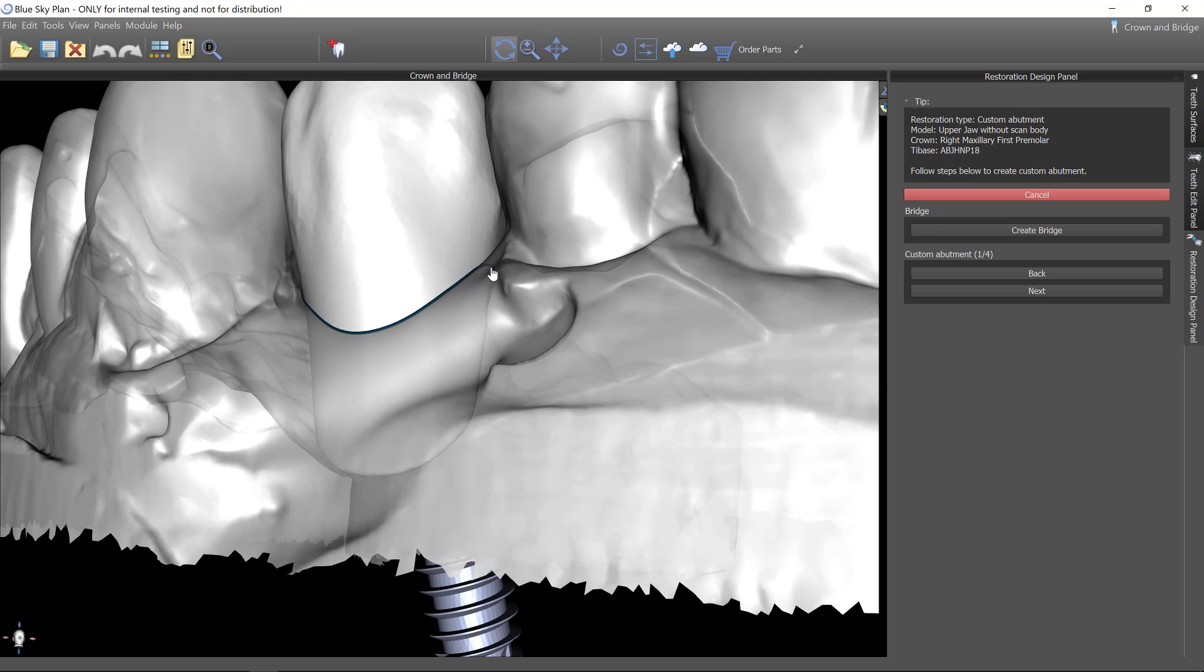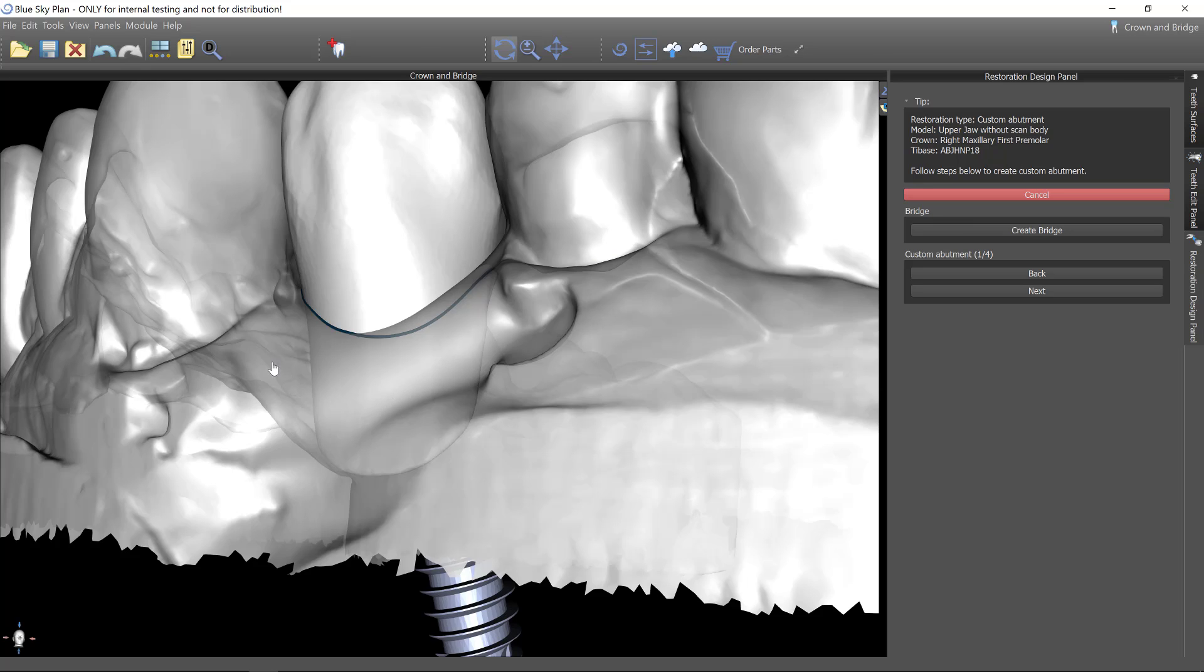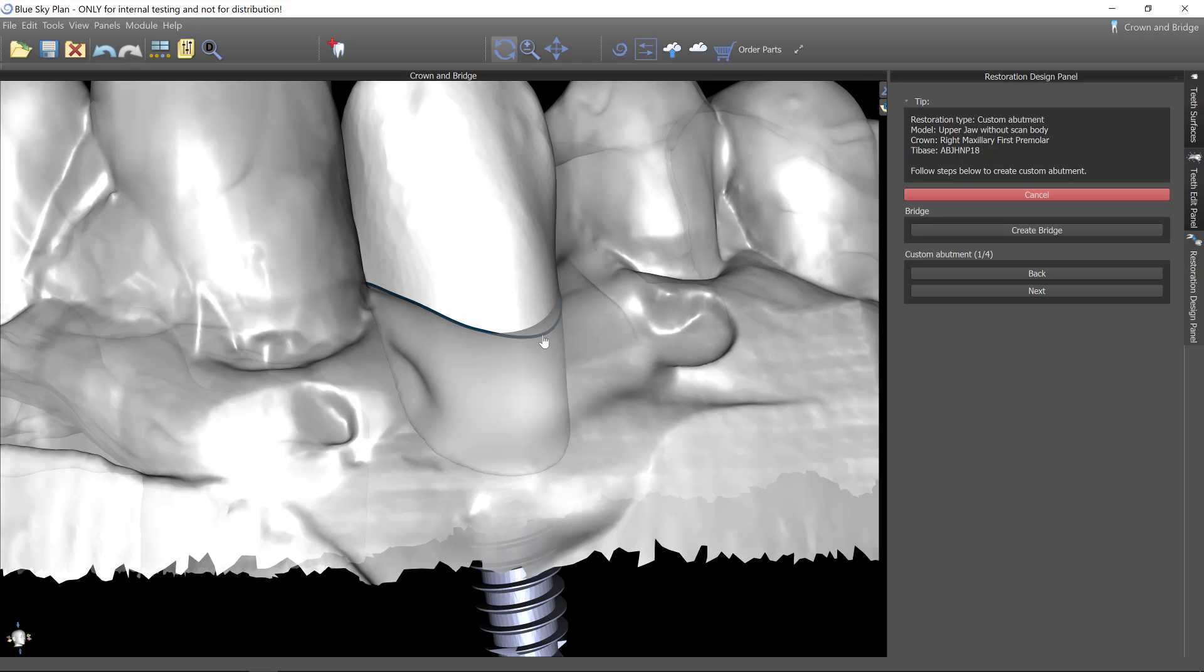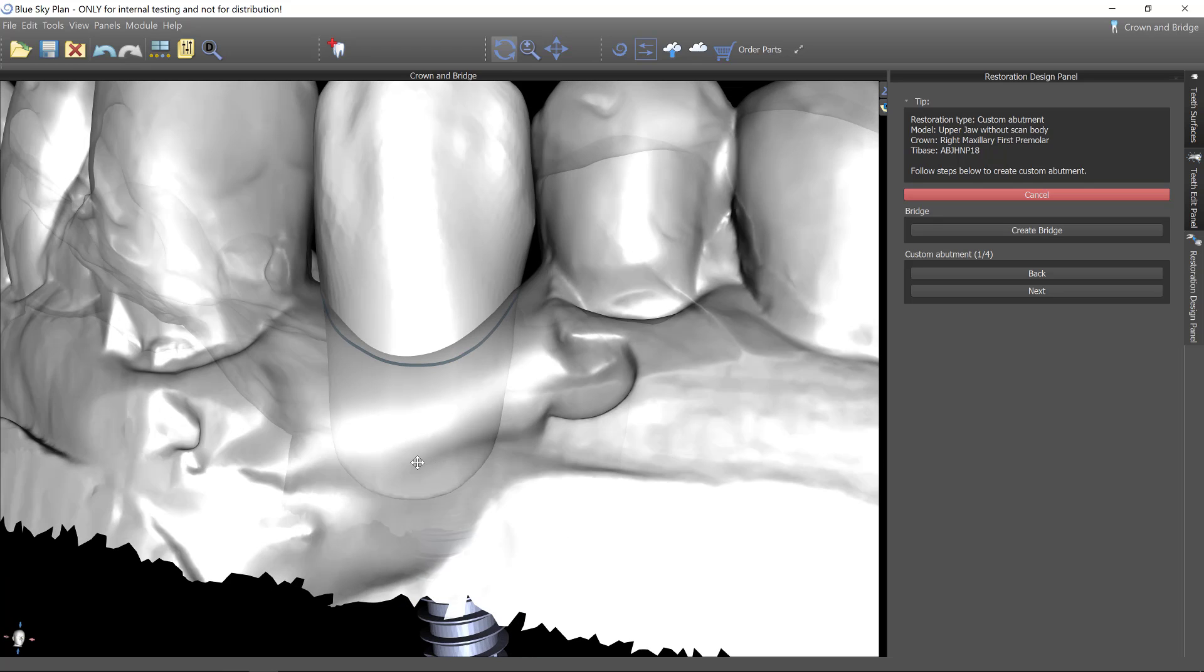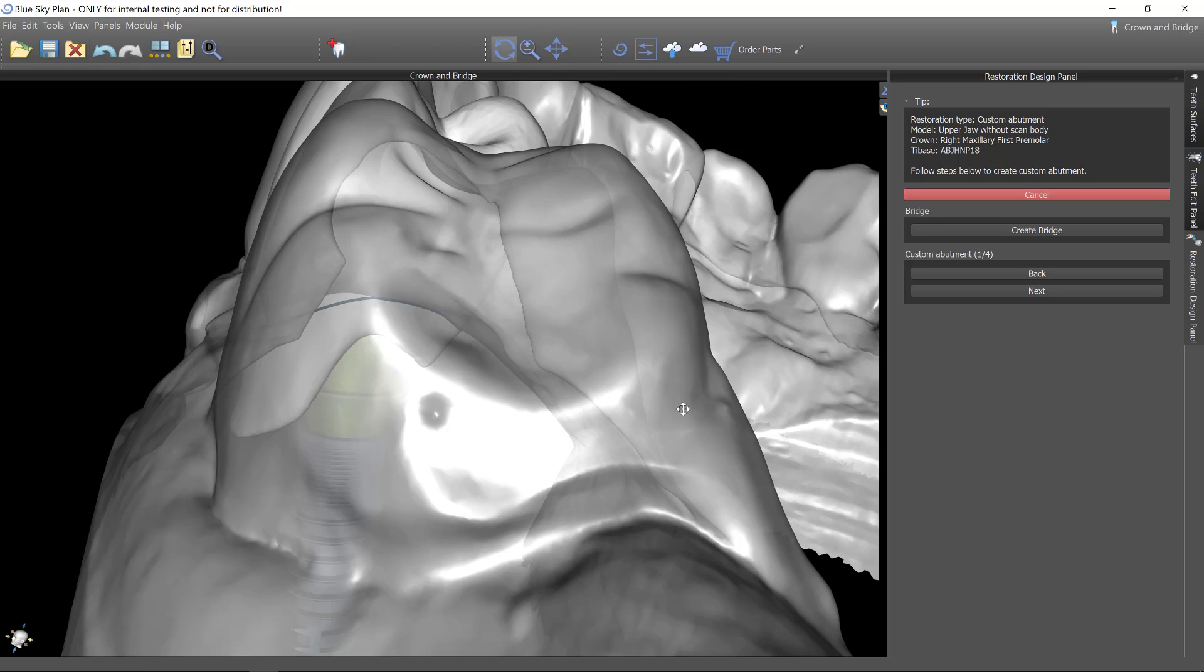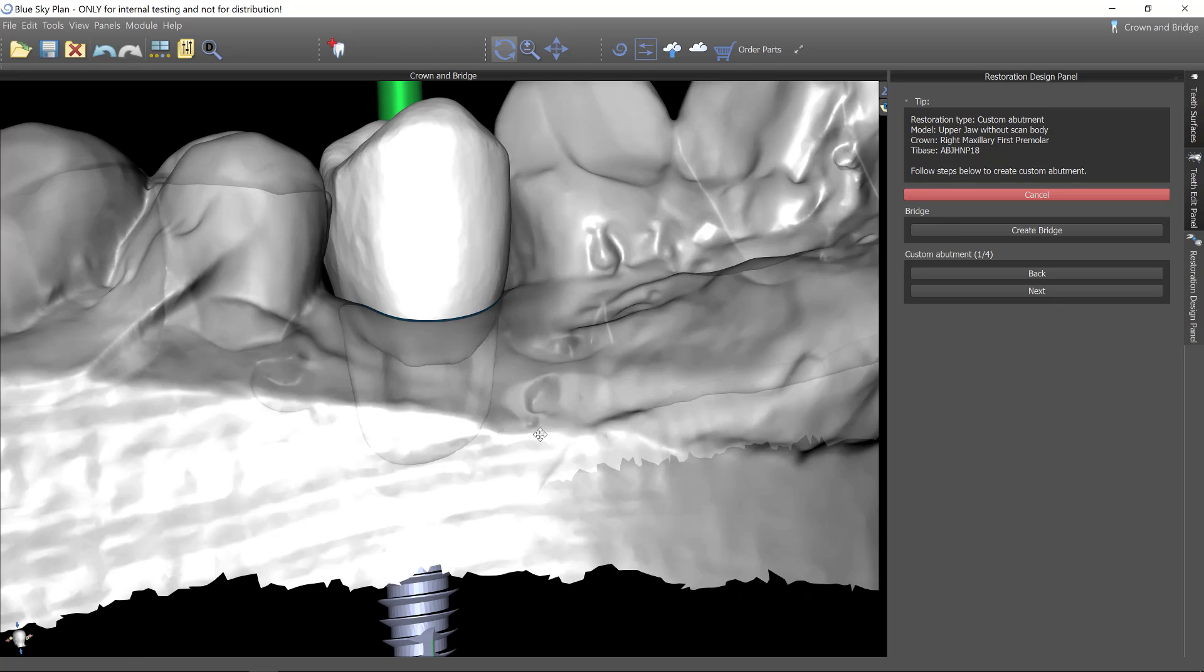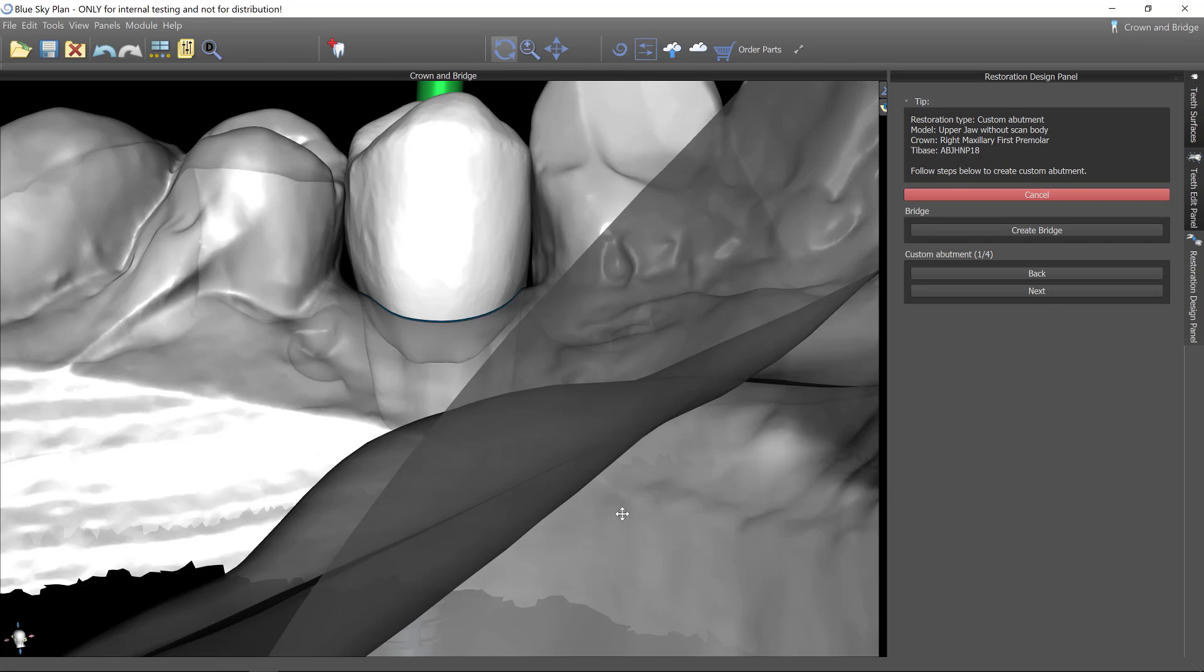So for some reason that didn't take. Let me redraw that. To redraw this margin, I'm pushing shift and we'll come back in and correct. There we go. You see how that corrected that time. So I'm just drawing this more subgingival. And there we go. Now mesial and distal, I want equigingival. And then actually on the lingual, I'll typically make that supragingival.